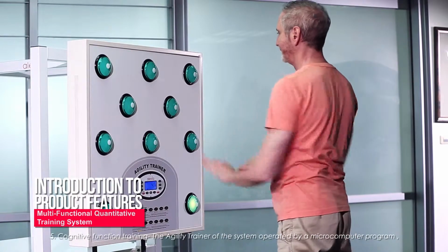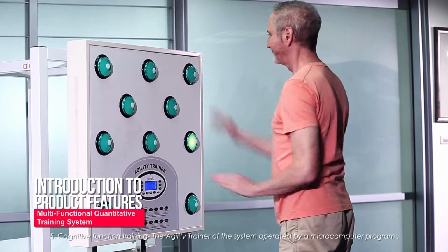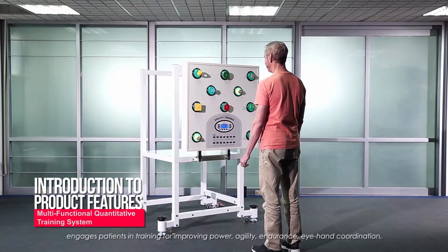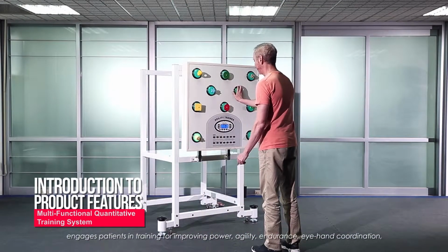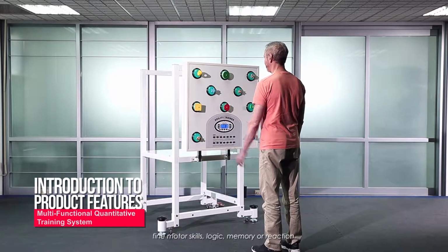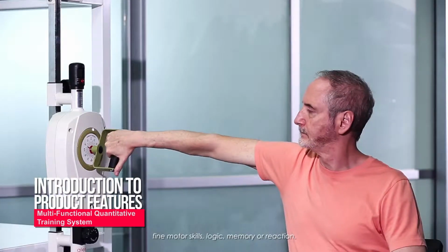5. Cognitive function training. The agility trainer of the system, operated by a microcomputer program, engages patients in training for improving power, agility, endurance, eye-hand coordination, fine motor skills, logic, memory, or reaction.